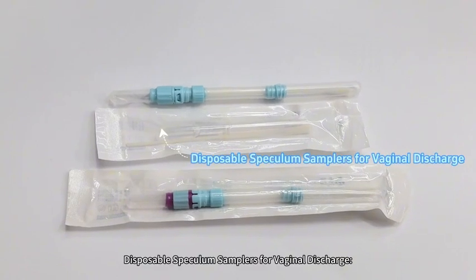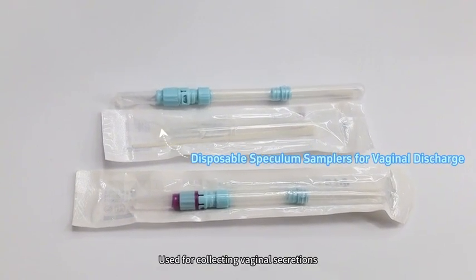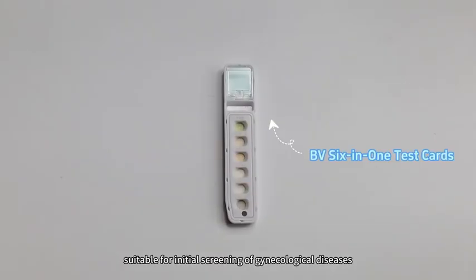Disposable Speculum Samplers for Vaginal Discharge are used for collecting vaginal secretions, suitable for initial screening of gynecological diseases.